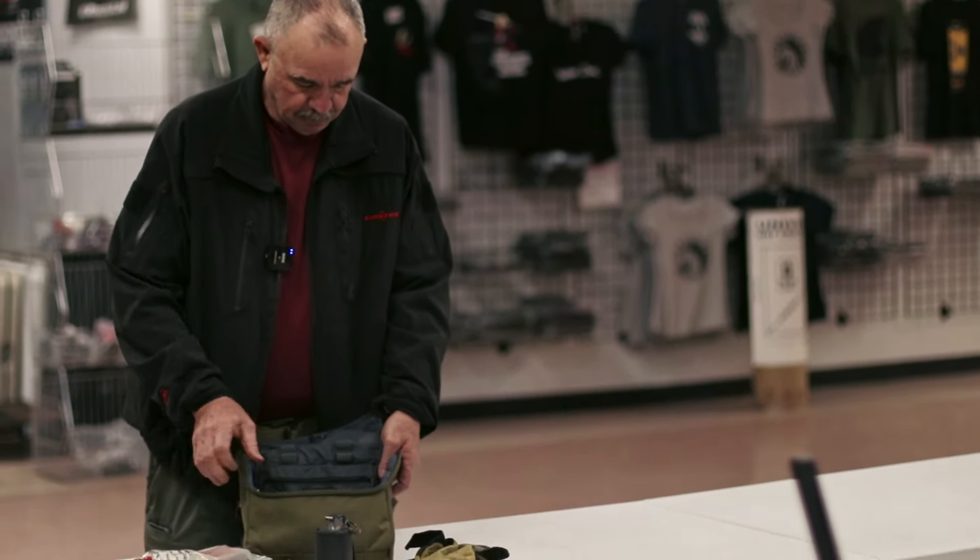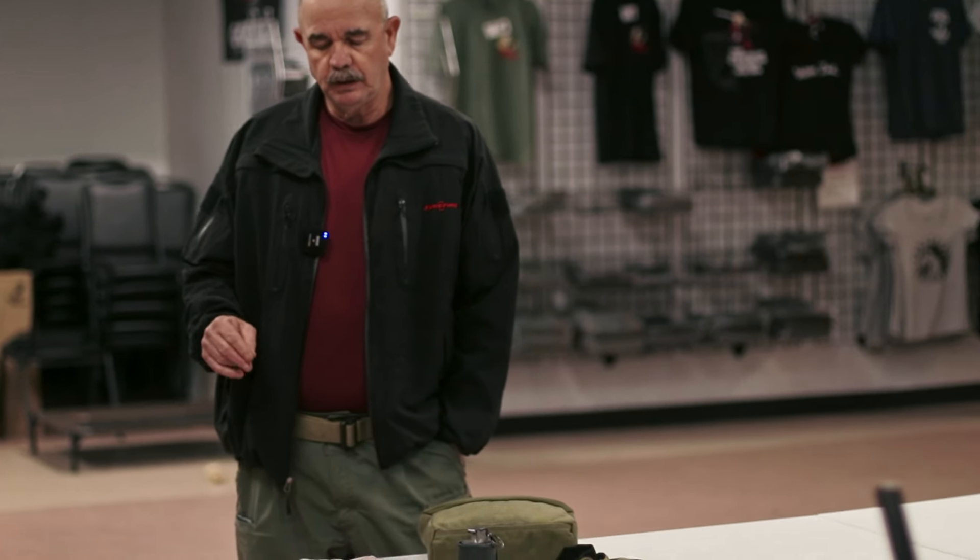So that's what's in my med kit for my bike. Hope this helped you guys. I would tell you to act accordingly. And just as far as vehicle kits go, whether it be a motorcycle or a car, you should have one kit for each person that's riding in that car.